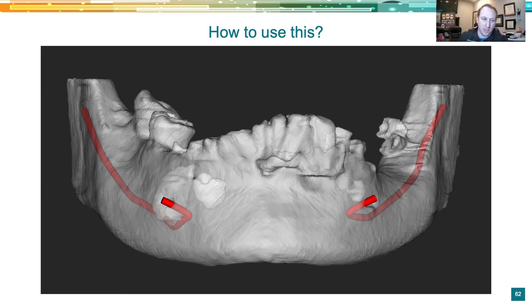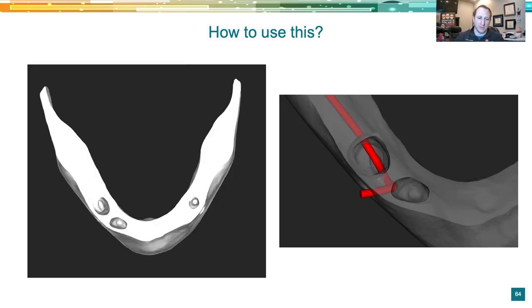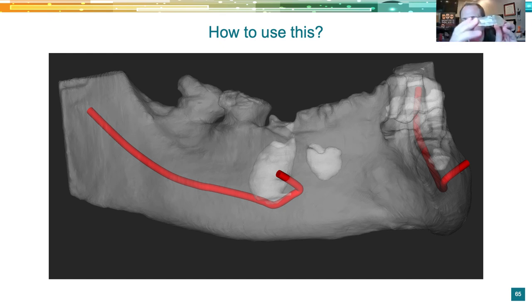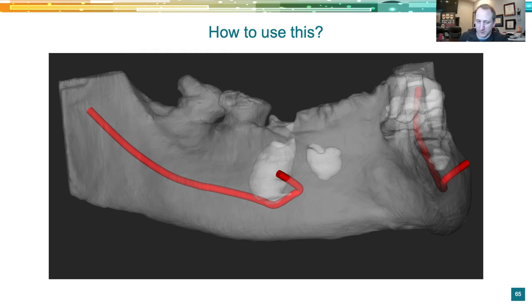Here's the 3D bone-segmented model — and in this model alone you can't really see the cyst since it's inside the bone. By increasing translucency in the digital rendering, and doing a digital alveoplasty reduction, we can see the massive cavern inside. Mapping the nerve, we can now see it running right through the cyst cavity. We went ahead and printed this in a clear resin so we can actually hold the model and appreciate the nerve canal and the massive lesion right on top of it.